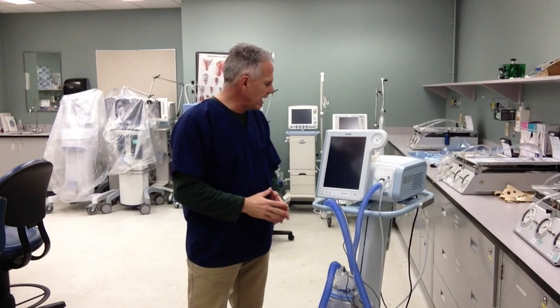Hi, my name is Alan Prost, and I'm going to discuss with you today some of the basic operation parameters of the Respironics V60 Non-Invasive Ventilator. This ventilator is designed to do a wide variety of jobs, but most importantly, non-invasive ventilation. So we can either use a full face mask or a nasal mask on our patient to augment their own spontaneous breathing efforts.